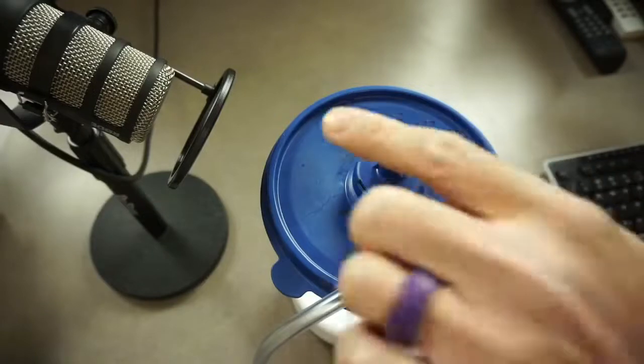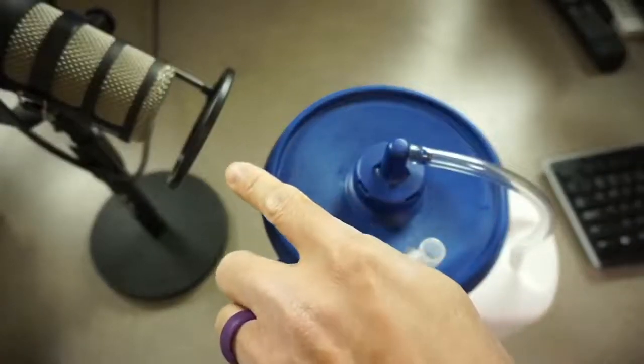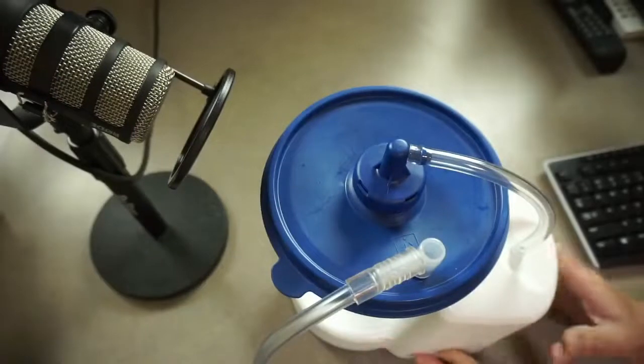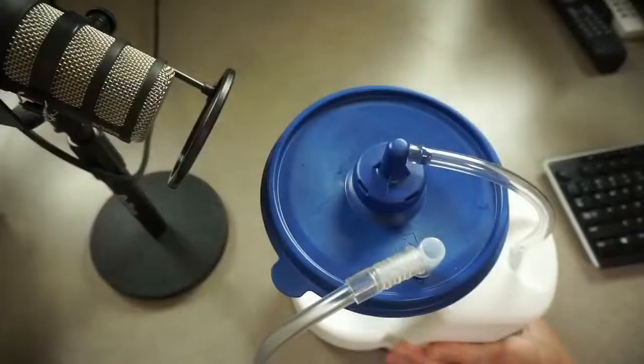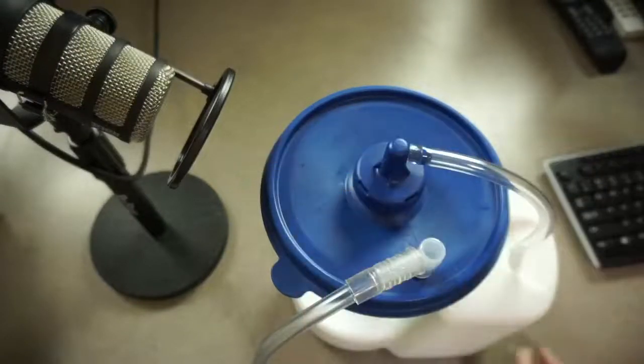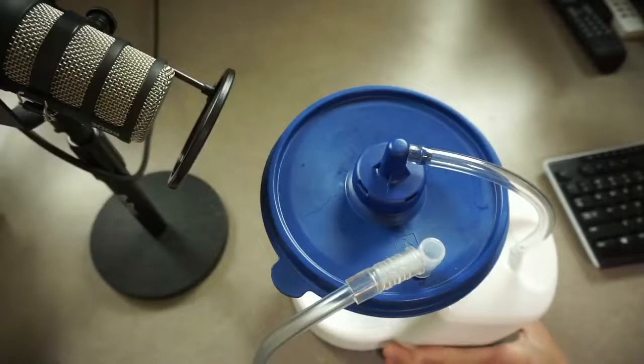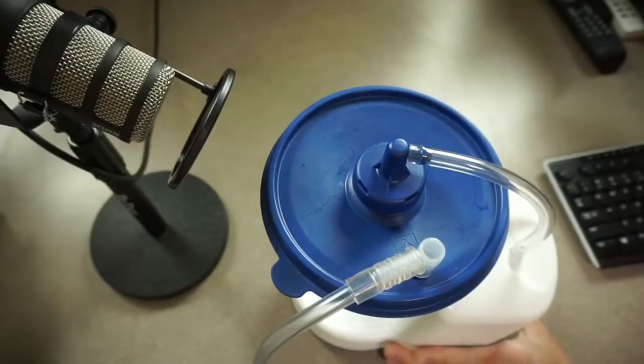So let me turn on this microphone right here. And now, I'm going to turn on this battery-powered Purewick, and I'm going to turn off this microphone so you can hear what this sounds like with a microphone that is artificially close to it. So let me turn off my microphone and turn on this microphone. Alright, now I'm going to turn on the machine. I'm going to turn off my microphone right now.